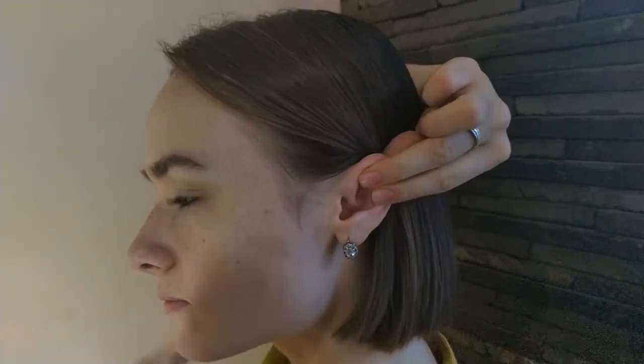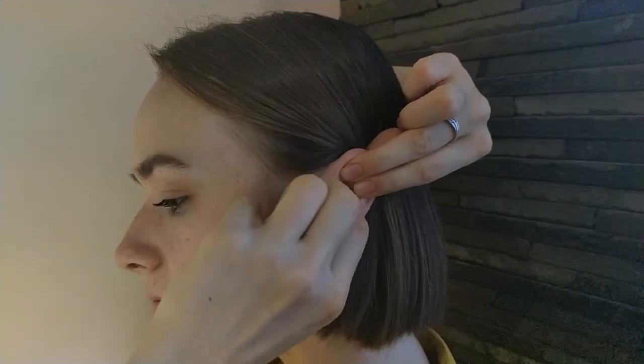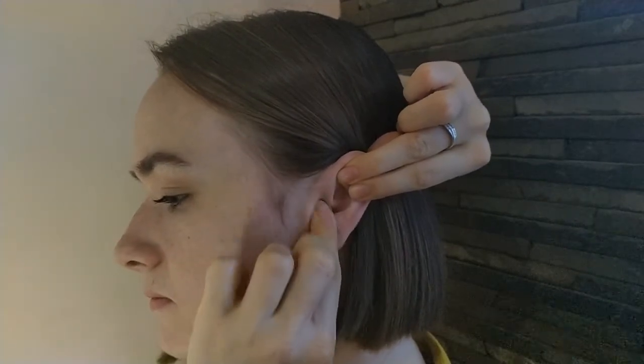Using another hand, pull the ear back to straighten the ear canal. Quickly insert the earplug and hold for 10-20 seconds until the plug expands.